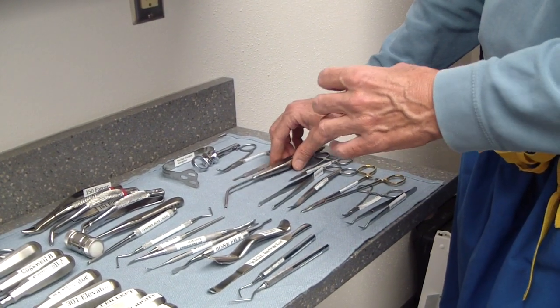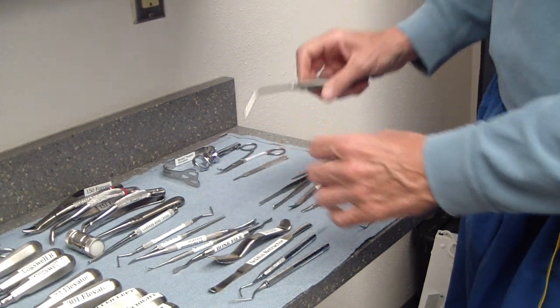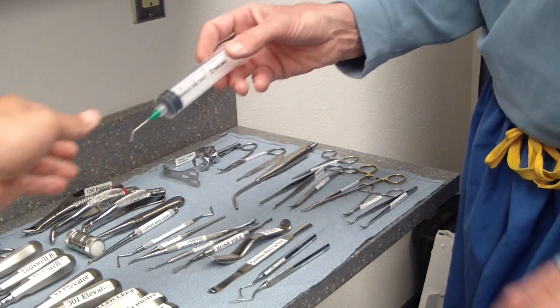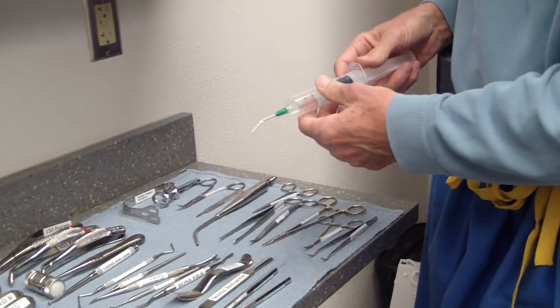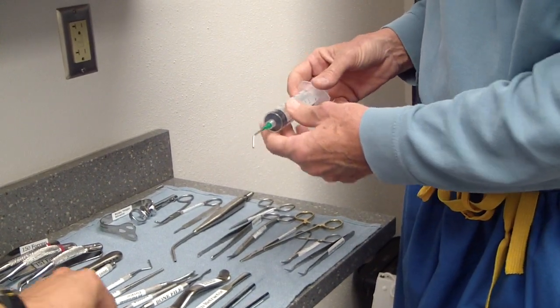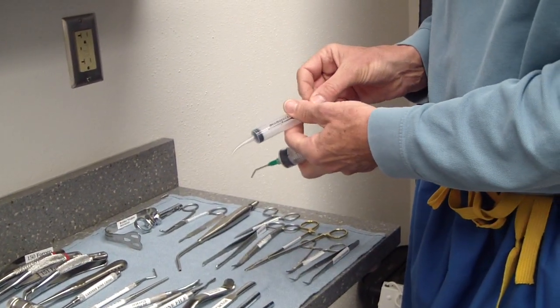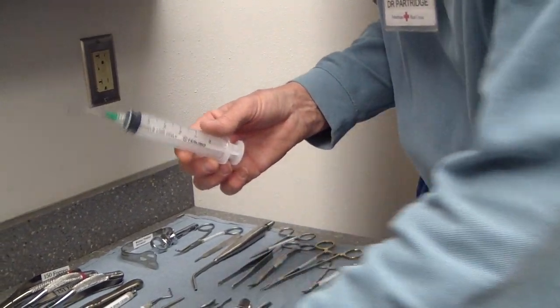When your field is flooded, you have to wait until it's dry to really do irrigation. I do intermittent irrigation — 10 cc's and then suction it all out; once it's dry, irrigate some more, 10 cc's in and out. We use a 30 cc syringe, and I always use tons of irrigation. This larger syringe is also used for patient treatment — irrigating dry sockets and other things. This one is absolutely sterilized.